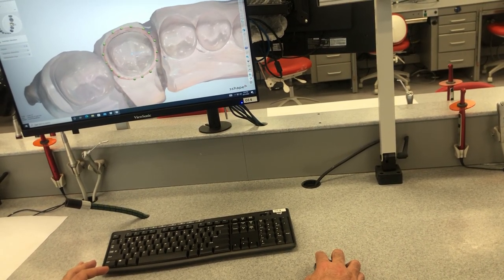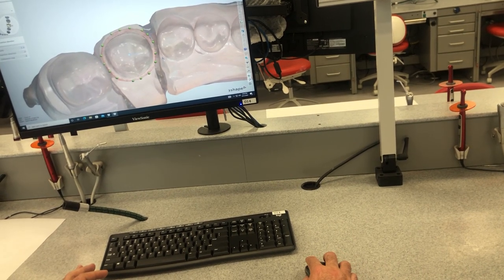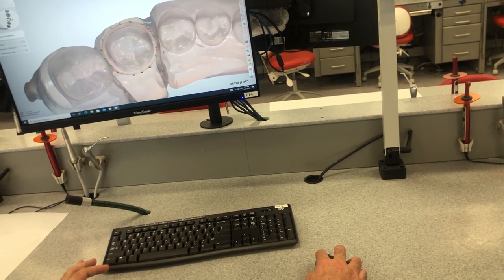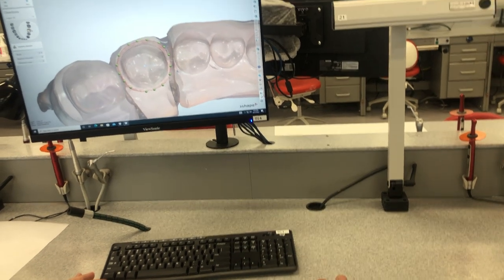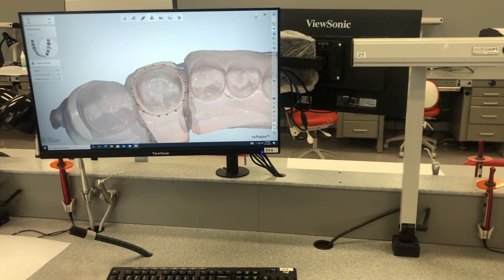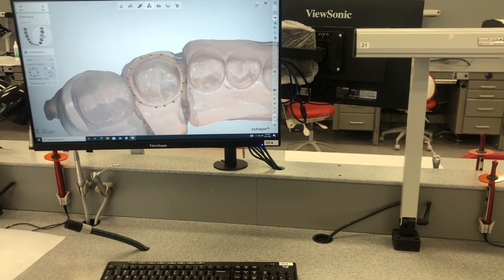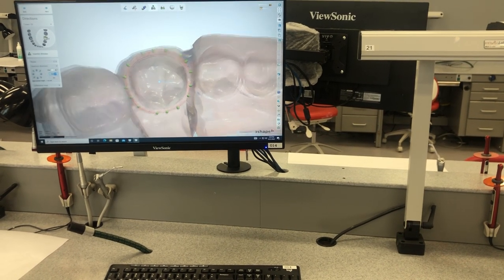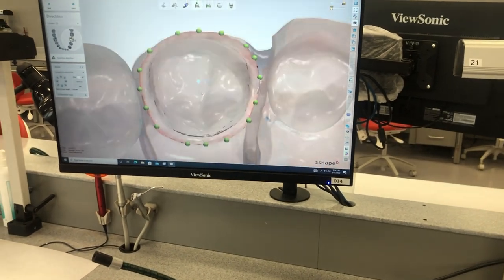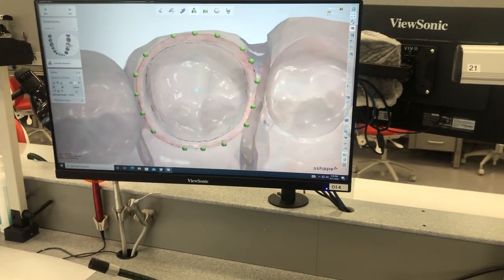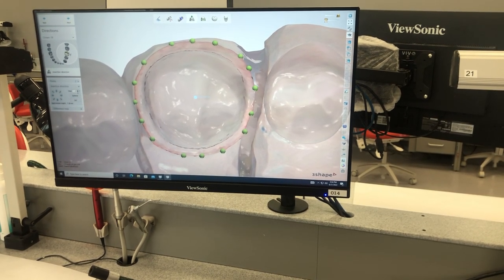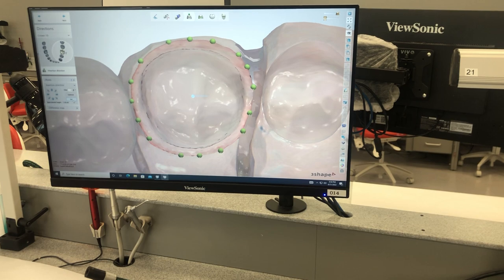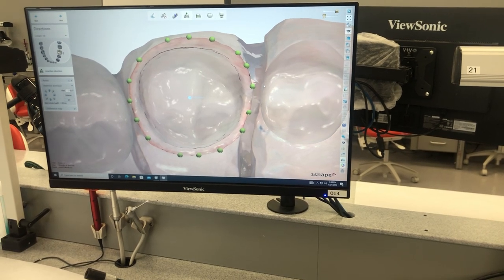It'll also optimize it for you and try to do it itself. Sometimes it's right, sometimes it's wrong. You can see that dark area is a little bit of an undercut, so this preparation had a little bit of an undercut. And then once you like where it's at, I'm going to rotate it a little bit because you also need to look at your interproximal contacts. You need to kind of get everything centered and the margin centered.